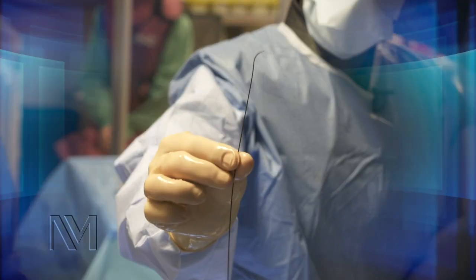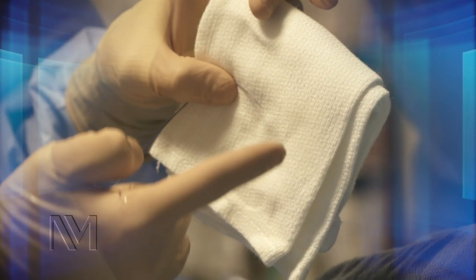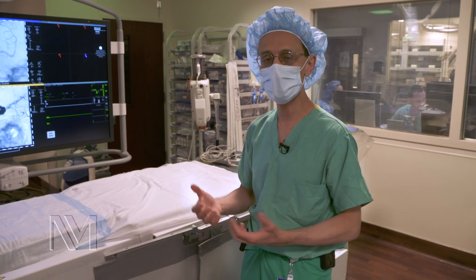Remember, blood vessels aren't always straight. So we have to have every single type of catheter and wire ready to go through these crooked pathways to get to the brain and restore blood flow.